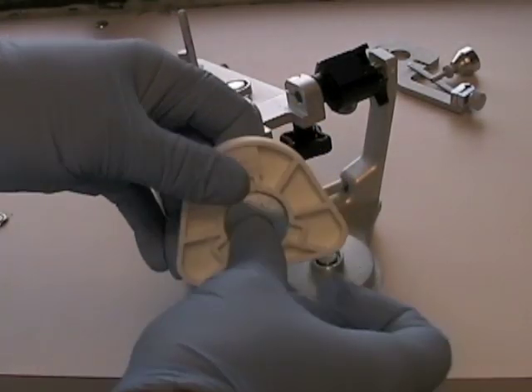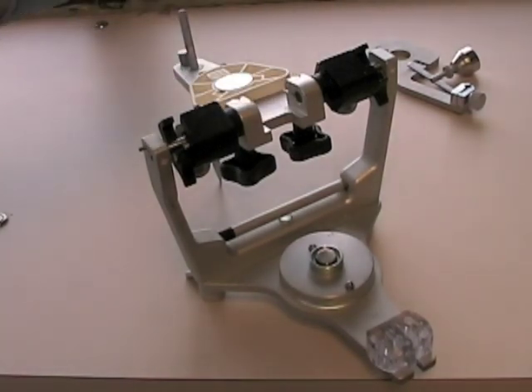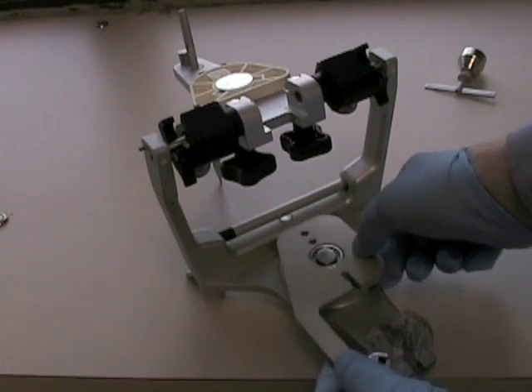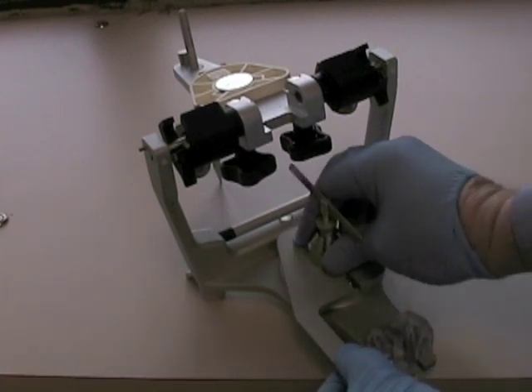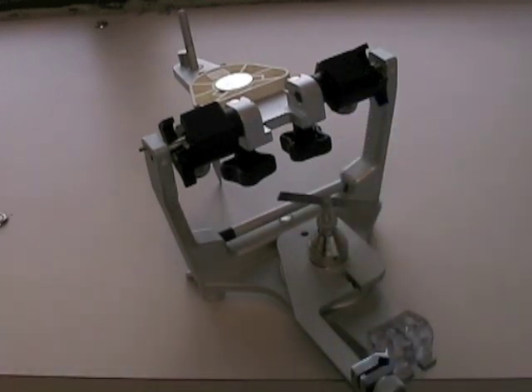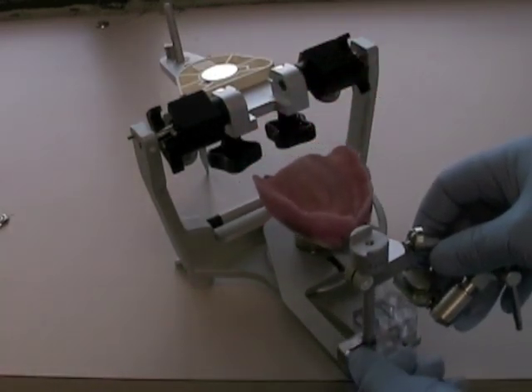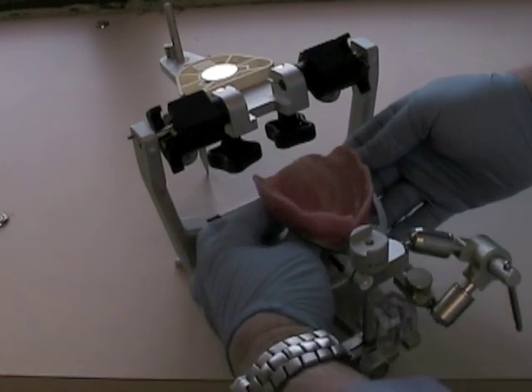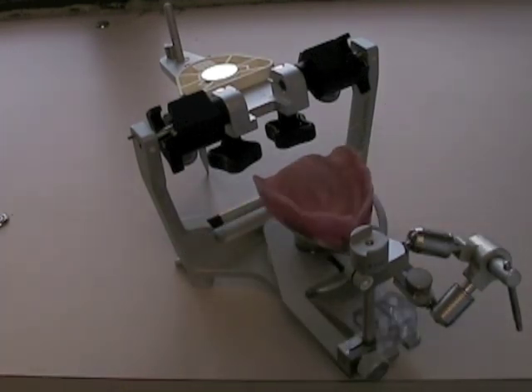Put the metal plate in the mounting ring before you place it on the articulator — you'll find it goes into place much easier. Place the indirect mount on the articulator and put the magnetic cast support on top. Then take the toggle assembly that you've removed from the face bow and tighten it onto the indirect mount. Then take the cast support and twirl it until it's supporting the record base.